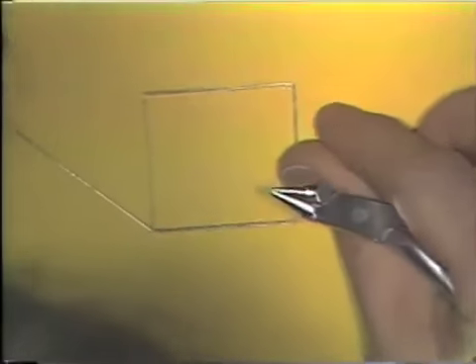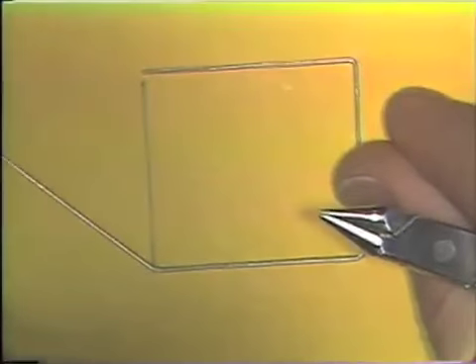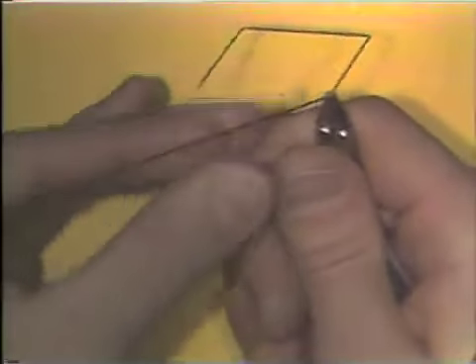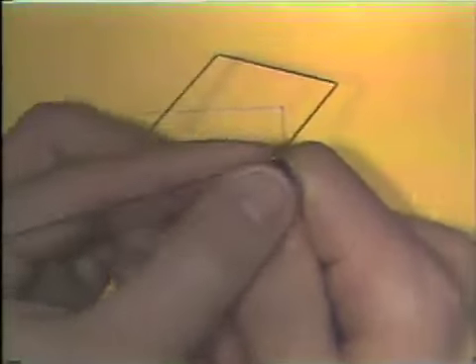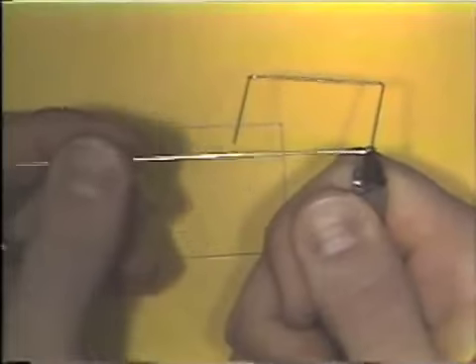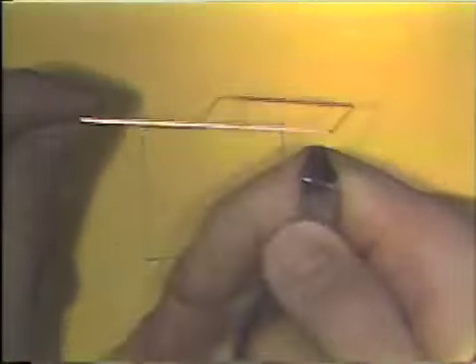It is tried back on the pattern to be sure that the bend is started in the right spot. And the bend is completed then by pushing the thumb over the round beak of the plier with control of the plane and space in mind at all times.